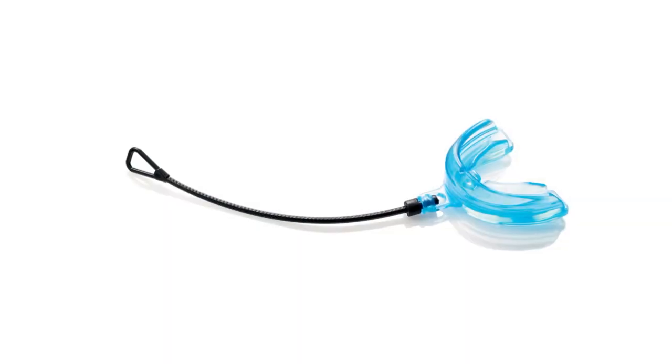The braces mouth guard is available in adult and youth sizes and comes in strapped and strapless variations. It is available in either blue or pink.